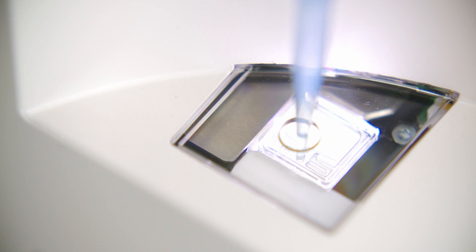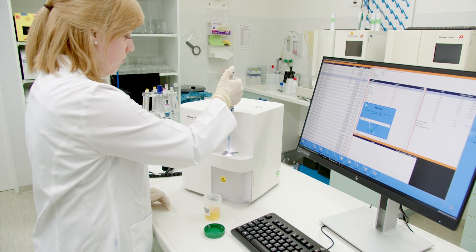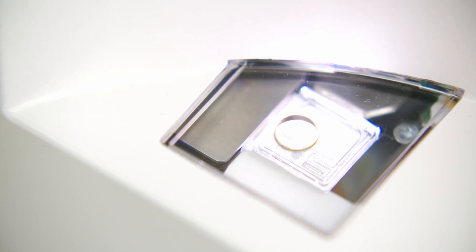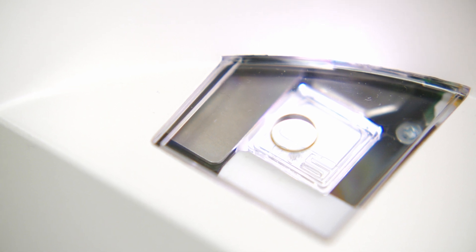The cuvette is filled with urine up to the second loop to avoid overflowing and subsequent contamination of the device. If the sample volume is too small, there is a risk of air bubbles.